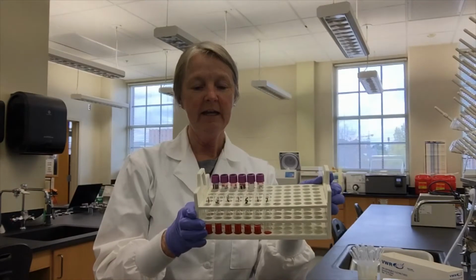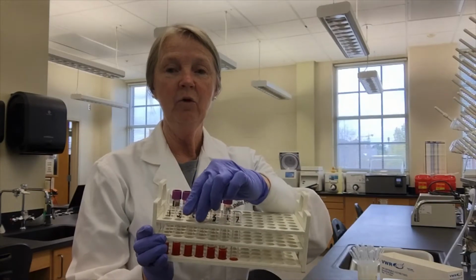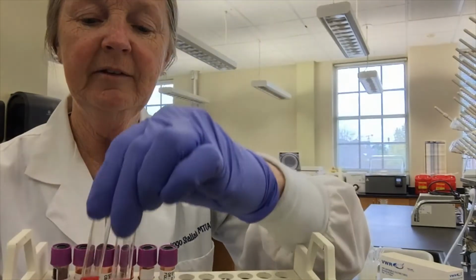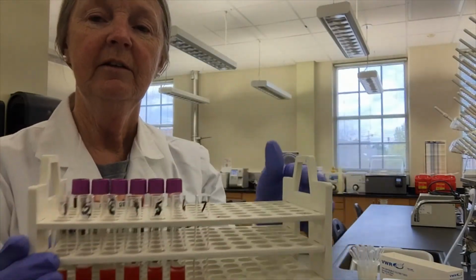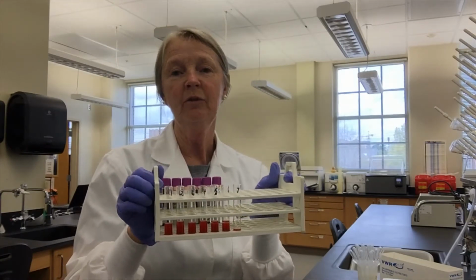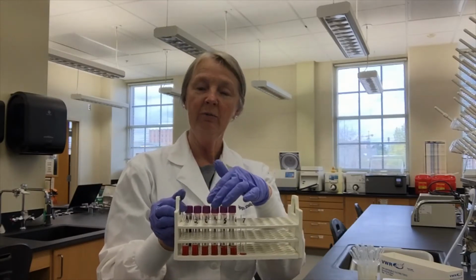So this lab is an RH lab, so we're going to be testing samples. I have taken 6 blood samples, and I have gone ahead and washed the cells and created a 3 to 5% suspension of red blood cells. So I actually have 7 samples. I know your worksheet has 4, but I would appreciate it if you would do this for all 7 results. So we're going to do RH, and we're going to see if they're RH positive or RH negative. If they're RH negative, then we're going to take it out to see if they're a weak D. You talked about that yesterday with Brittany.